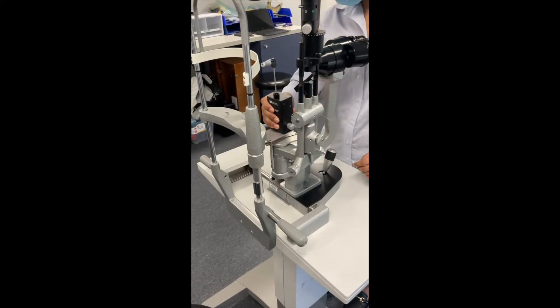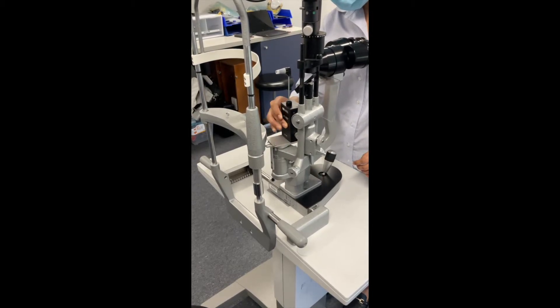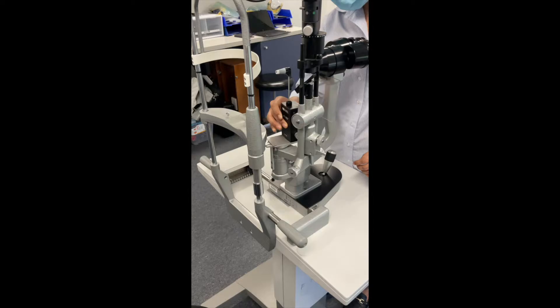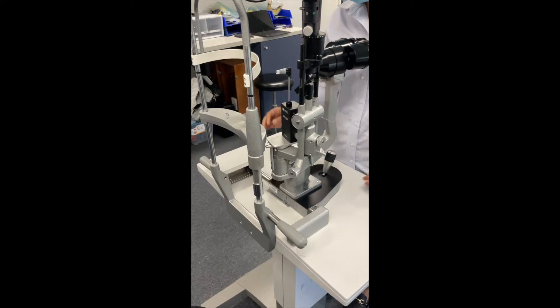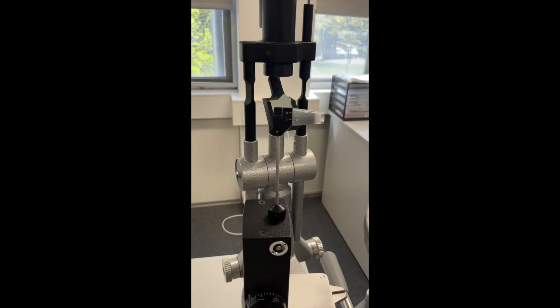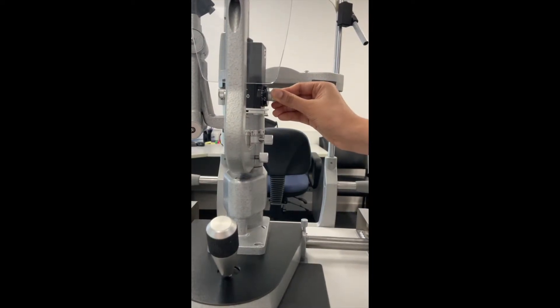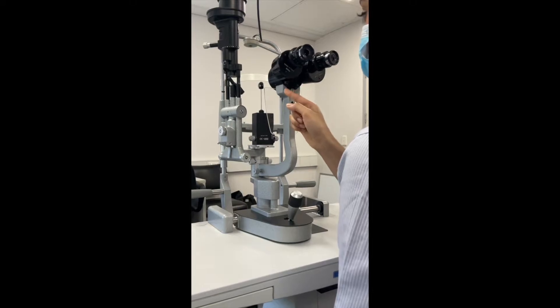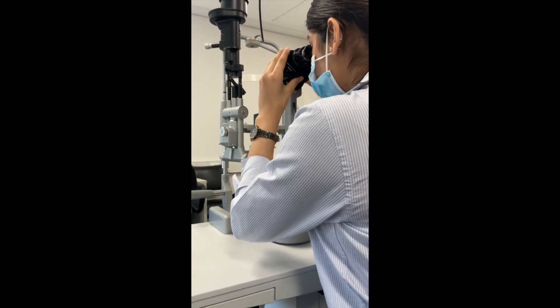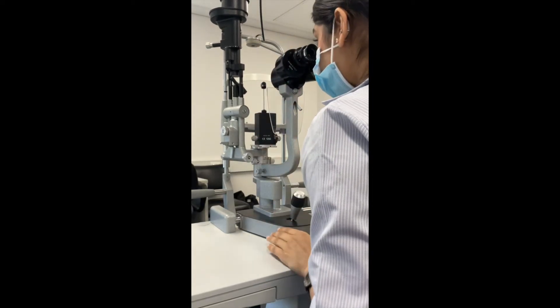Mount the Goldman Tonometer onto the slit lamp, making sure that when testing the right eye it is placed on the right side of the slit lamp, and when testing the left eye it is placed on the left side. Next, confirm that the white marking point on the tonometer head is aligned with the zero marking on the measuring prism. Then check that the calibrating dial on the tonometer is set on 10, and ensure the magnification has been set to times 10 on the slit lamp. Also adjust the eyepiece viewed by the clinician to their respective refraction.